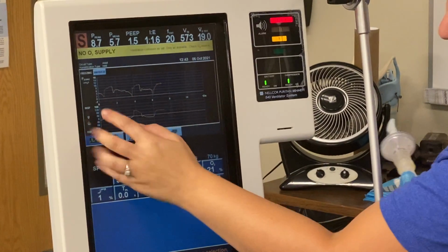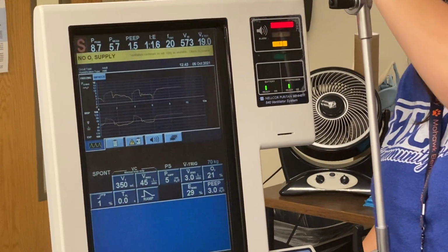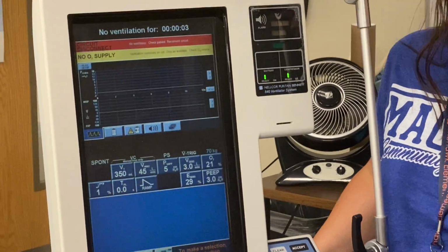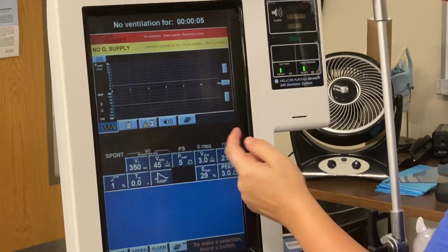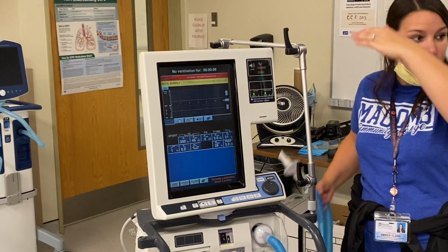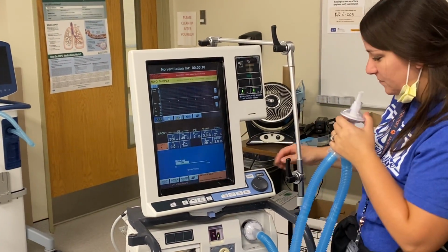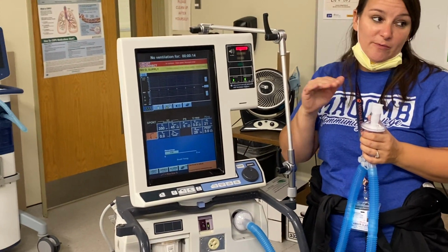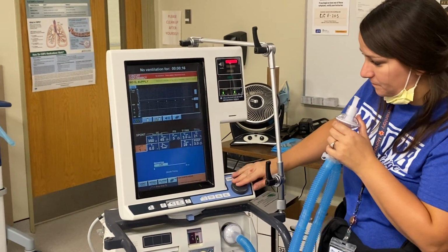Alright. Now do you guys see that big giant scoop there? Because now I'm really having to pull to get to that peak pressure. I'm really pulling, so that's a scoop. Okay, it didn't freeze. But did you guys see that scoop? We're only looking at before.